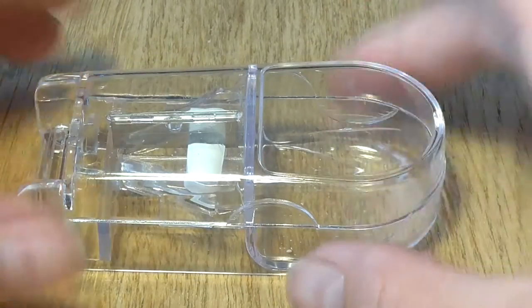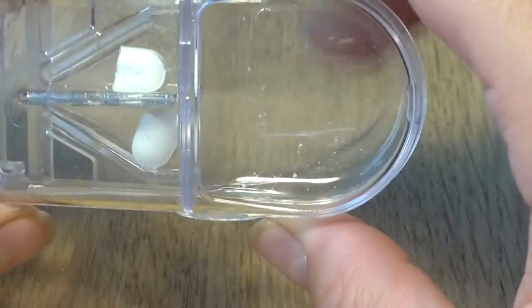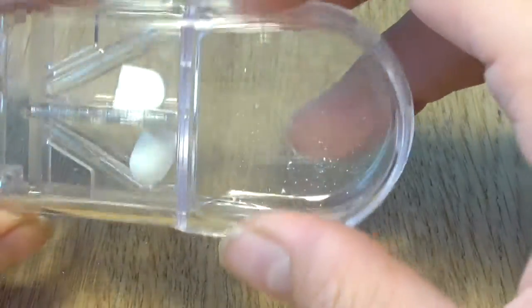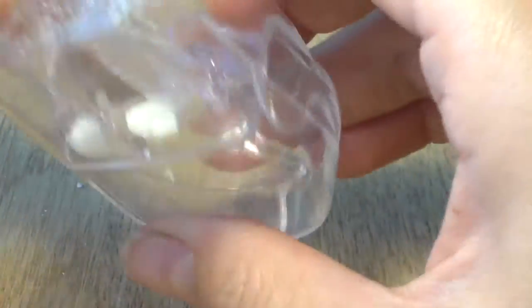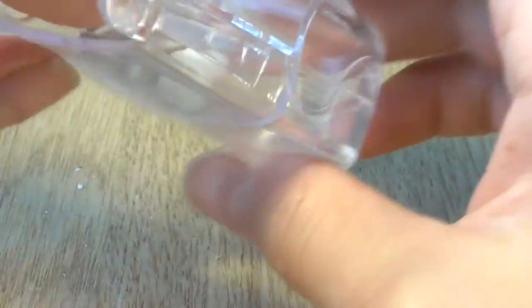Good, it worked! So, I really don't need a pill cutter. I occasionally take one or two tablets for a headache and I don't need to cut them in half. This purchase is for my grandmother.